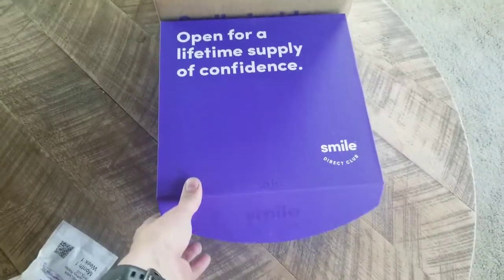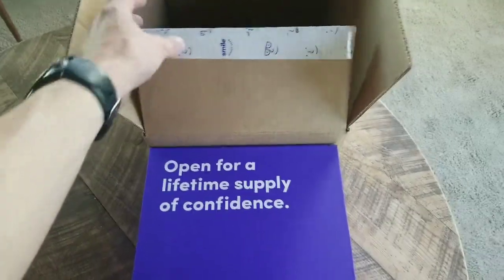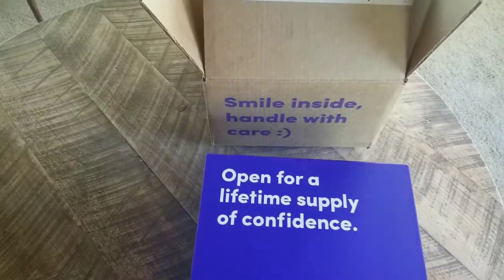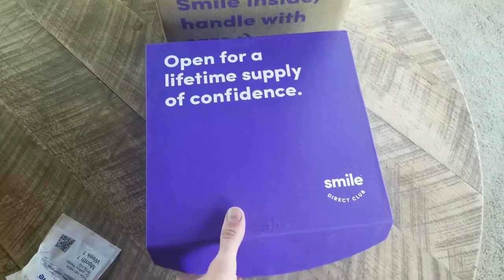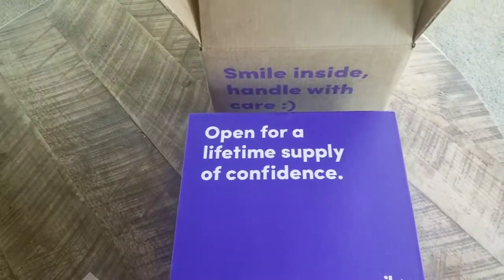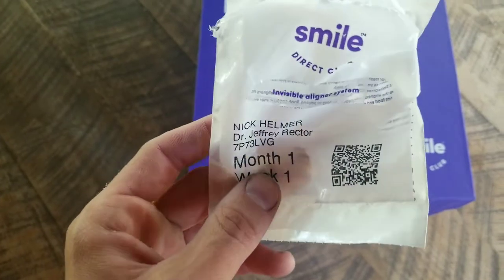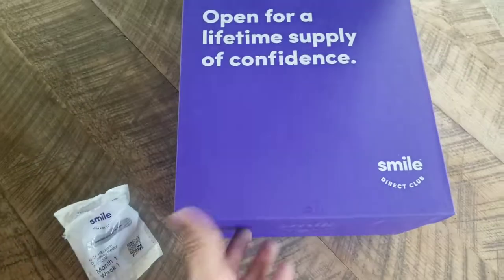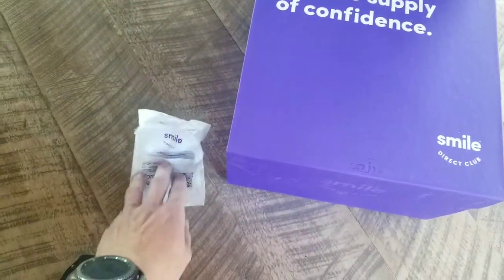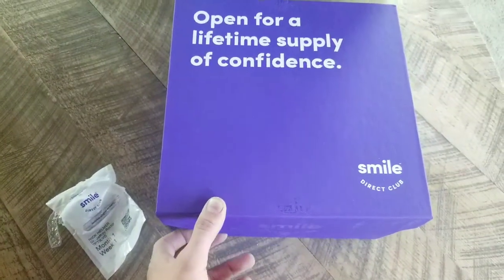How's it going guys — excuse me, I'm a little sick — but I figured since I got this and I was wondering what all the hype was, I was going to do a little unboxing video. I'm thinking about doing a journey video, beginning to end. I am actually wearing my bottom ones right now. I just got it, just opened it up, wanted to make sure it fit as well as the top one. The top one's in here — I'll show that later. But I had too big of a lisp to make a video sooner.